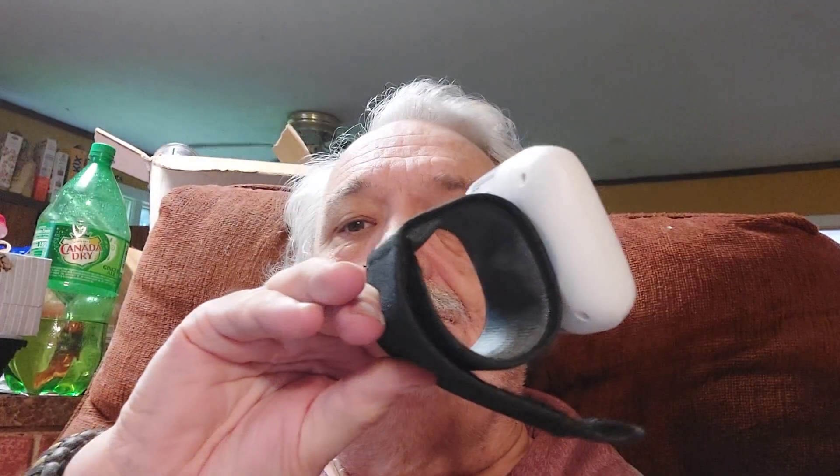This unit here is on a little wrist strap. You can set up the date and time on it — I guess you don't have to, but it remembers 60 readings, so it's really to your advantage to do that. It has a little color code which tells you what zone you're in as far as your blood pressure. And what do you know, this matches what the doctor said my blood pressure was. I get fairly normal blood pressure readings with this, though I've gotten a few high ones — but sometimes that's to be expected.